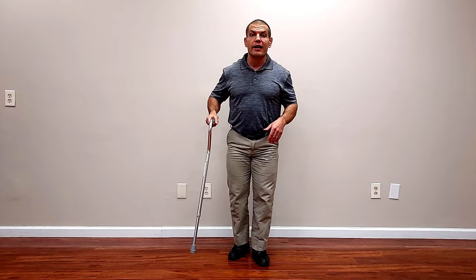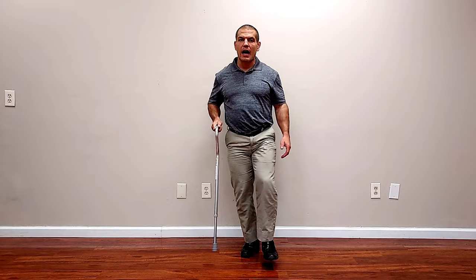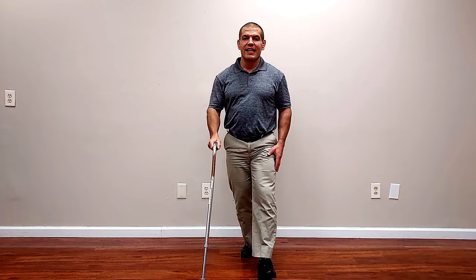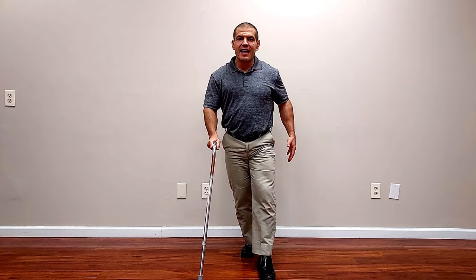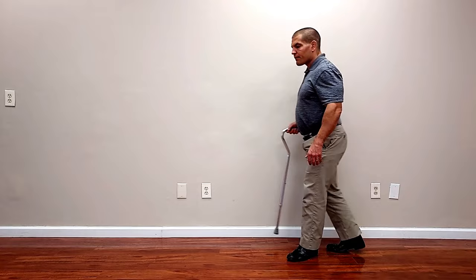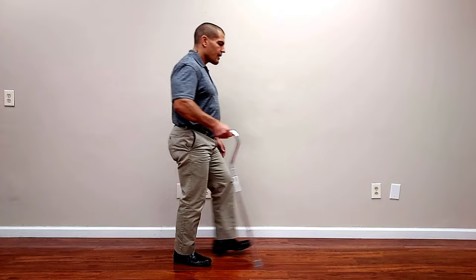How do you move the cane? A lot of people just tap it around at random, but you should really be putting weight through it. Ideally, you want to move it at the same time as the sore leg — the cane is in the opposite hand from the sore leg. Advance the cane forward at the same time as the sore leg, and have it hit the ground at the same time or just momentarily before the sore leg hits the ground. That way you can put pressure into the cane and take some pressure off the sore leg when you take a step. You can see that in real time as you move the cane at the same time as the sore leg.